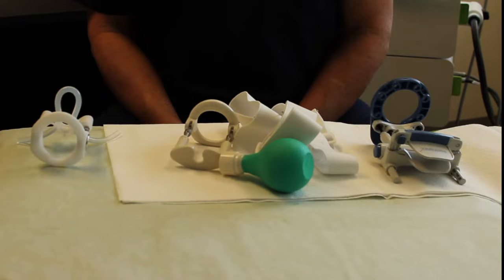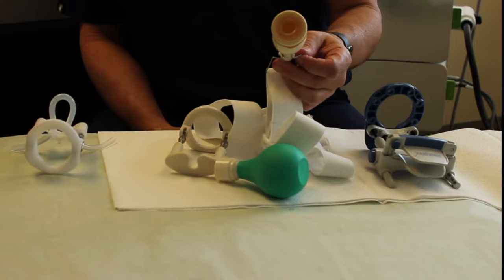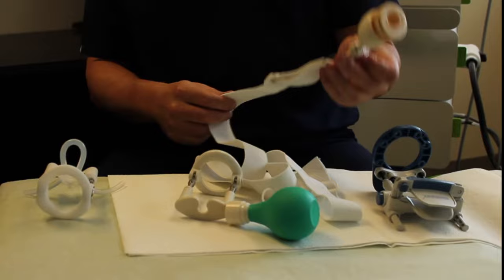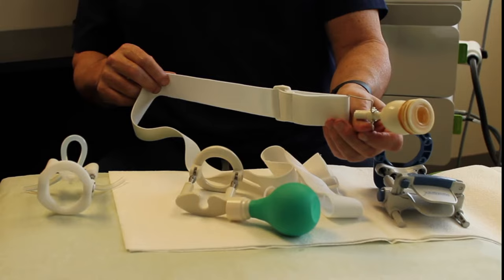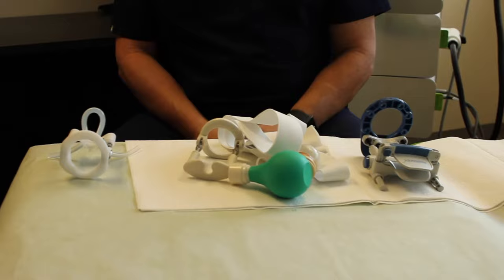In the center is the PeniMaster Pro, which is probably the most comfortable of the three, primarily because of the condom device for suctioning up the glands of the penis. Another benefit is it comes with a strap so that you can strap your penis during daytime hours, where the other two can only be used at home or at nighttime.